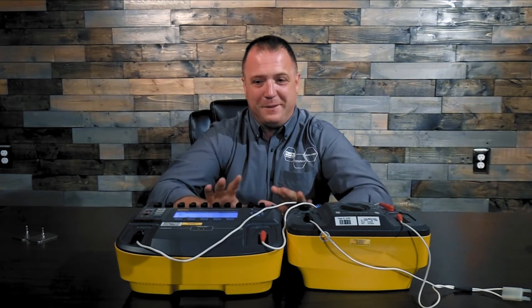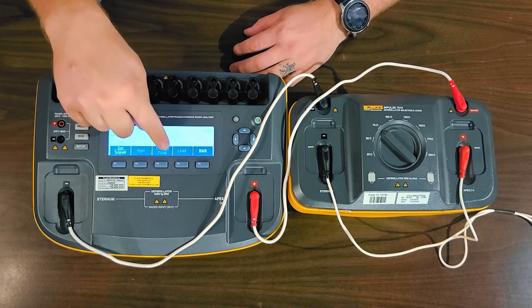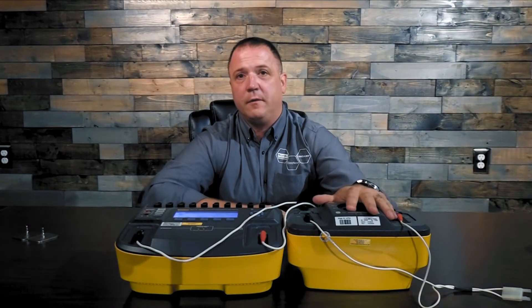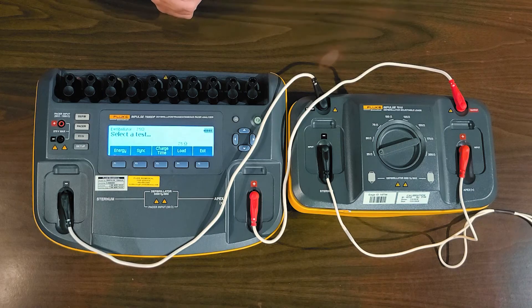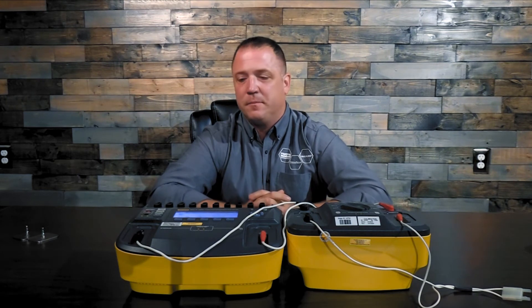That's something to mention, because it's going to happen. If you get busy and make the mistake of having 75 Ohms on the Impulse 7000 but you forgot to change the 7010 loadbox and it only has 25 Ohms — what's going to happen? Good news is you're not going to let the magic blue smoke out of your analyzers. What you will have happen though is you're going to get a reading that's out of spec, out of tolerance, not following all the discharge tests. You'd look back at your service manual, notice it's out of tolerance, realize the mismatch — 25 Ohms here, 75 Ohms there — and redo your testing. It's okay. Now you have the correct setup and you should be getting the right results.